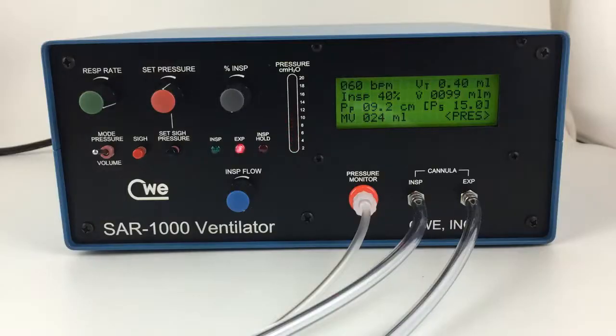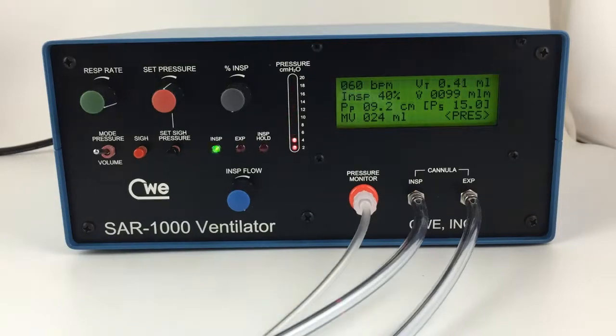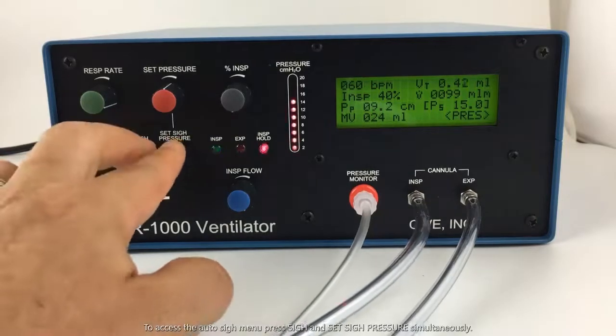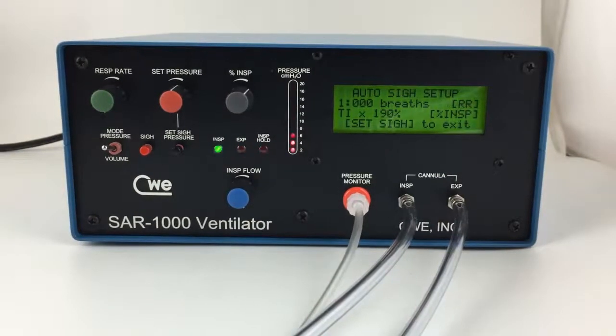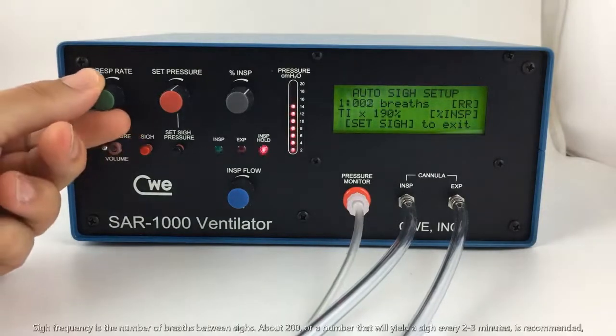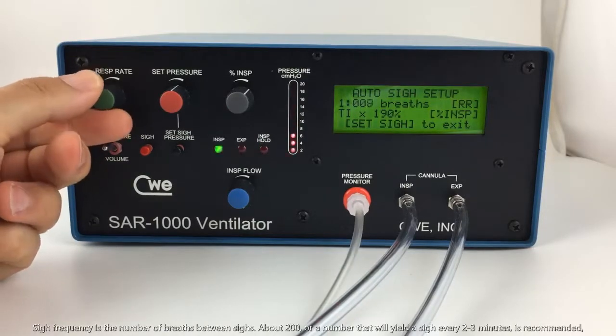The SAR 1000 can also perform an auto sigh function. There are two settings to adjust for the auto sigh feature. By pressing the sigh and set sigh button, we get into the auto sigh setup. The two settings to adjust in the auto sigh setup are sigh frequency and sigh ratio values. The sigh frequency is the number of breaths between each sigh.